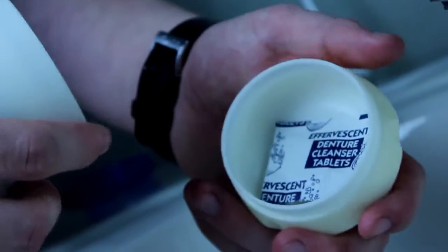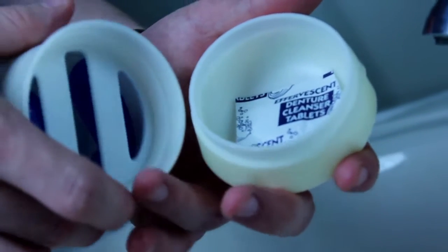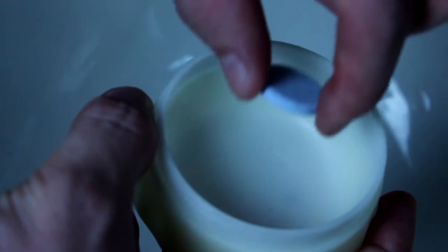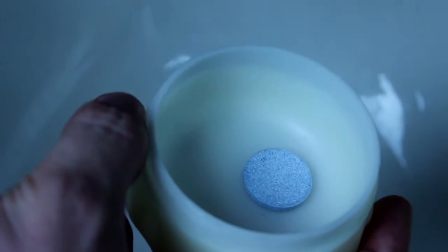This is how we intend for the case to be used. First, choose your preferred cleaning agent. In this video, we will demonstrate the product with a cleaning tablet. Place the cleaning tablet into the bottom compartment. Screw the bottom compartment back into the center.